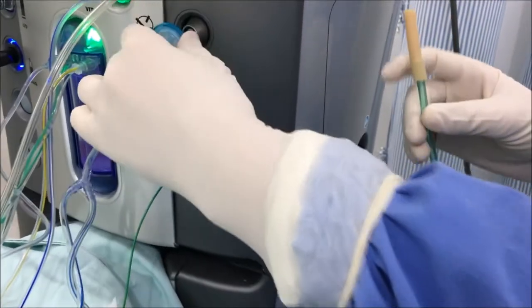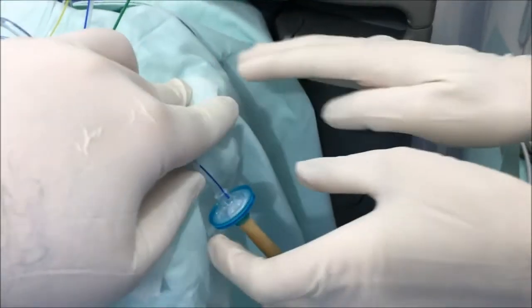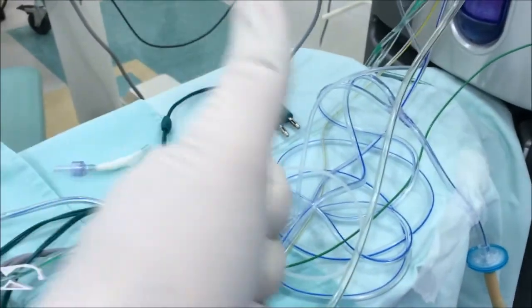And last but not least, don't forget to connect the air filter between the tubes in order to deliver clean air into the eye. After all, even in extreme situations, patient safety is our number one concern.